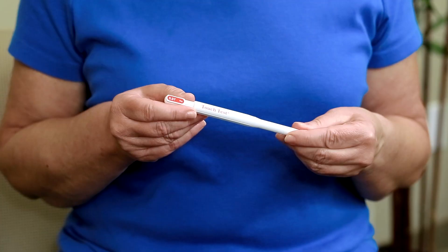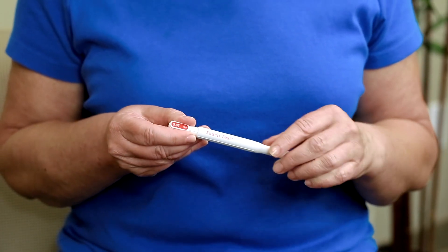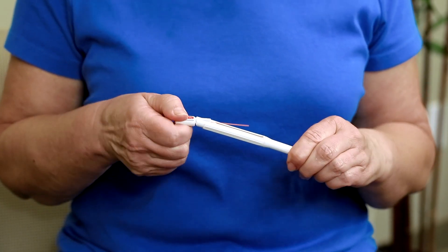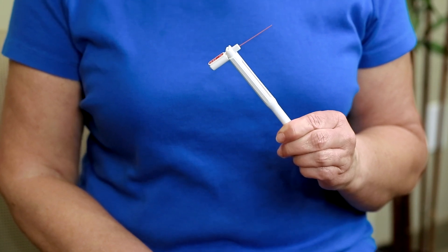It is the thickness of this monofilament that may help prevent skin breakdown or foot ulcers. The 5.07 monofilament comes protected in the handle when not in use. Rotate the sleeve 180 degrees to expose the monofilament in the groove. Flip the tip back to lock the monofilament into a 90 degree angle, ready for testing.